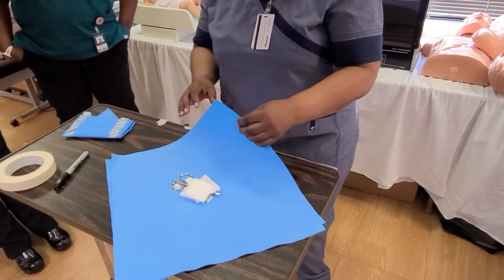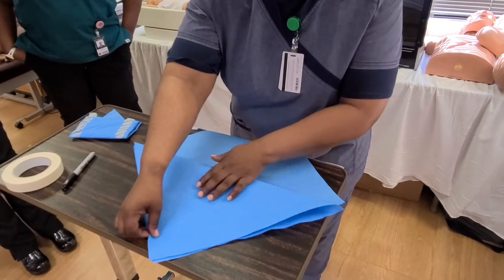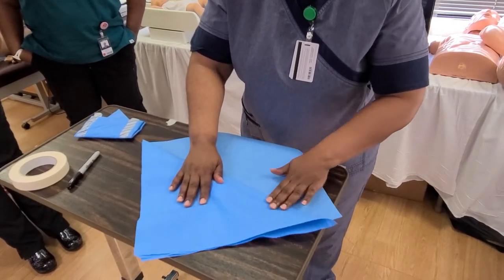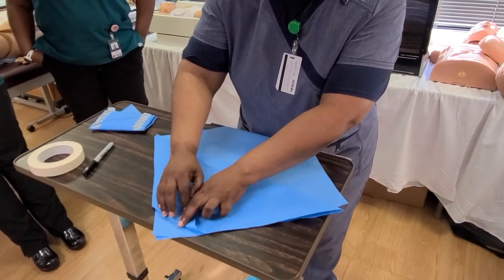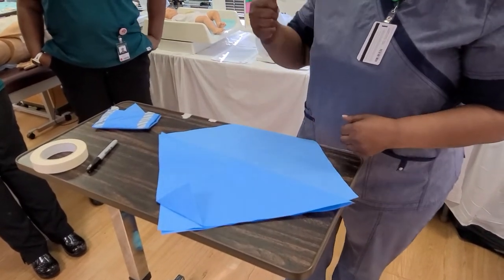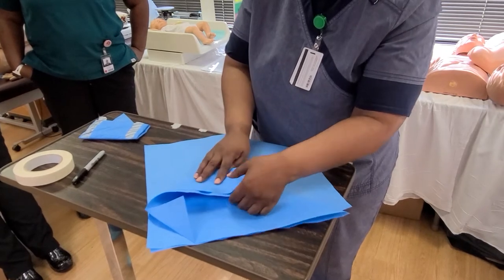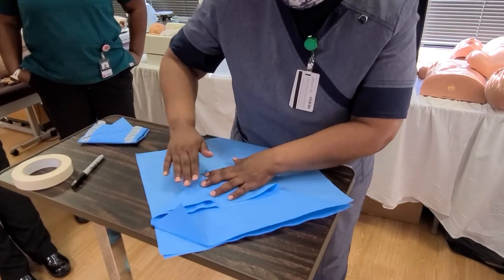The first thing I'm going to do is take my first wrap, put this in the middle, and turn it away from me. After I do that, I always smooth my edges out. Then I'm going to put my first flap down — because when I'm opening this, I'm going to take my thumb and open it like this, pull it toward me and down. Now I'm going to bring in the sides — it doesn't matter if it's right side or left side — but every time you fold over, you have to put a crease in.